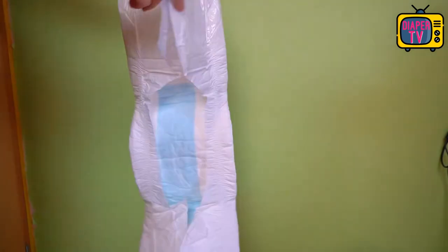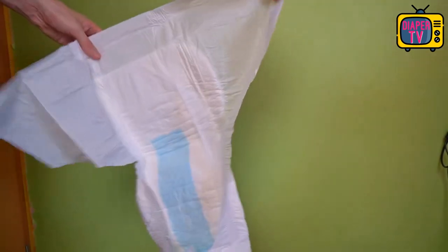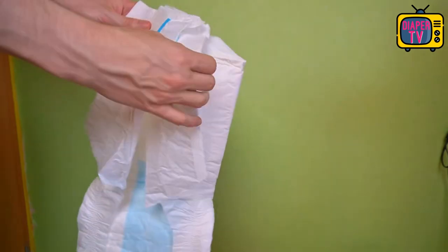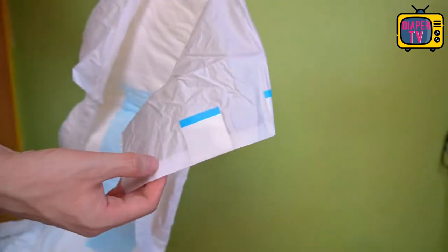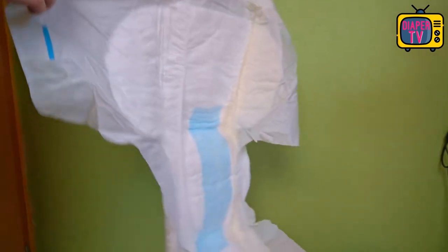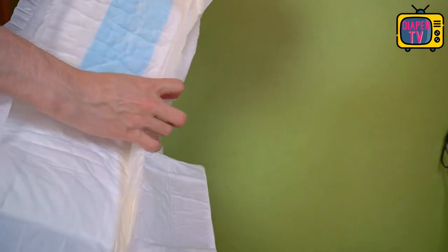The outer material has also changed — it is made of plastic film, but significantly thicker and pleasantly soft. The adhesives seem a bit small considering this thick diaper, which doesn't turn out to be a problem in the practical test. Inside, it has high leakage cuffs, which is good for protecting against leaks. There is also room to equip the diaper with absorbent pads, which can further improve the suction performance.